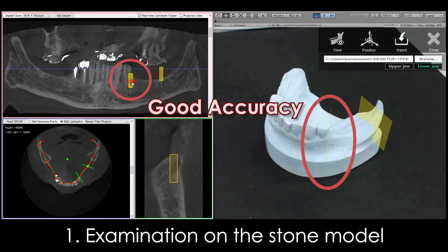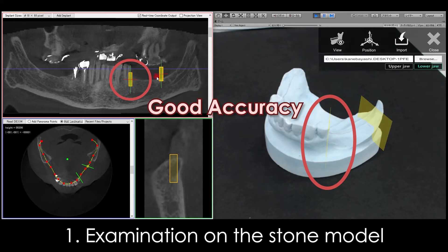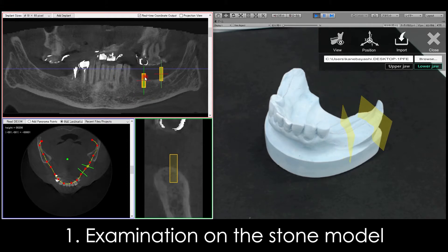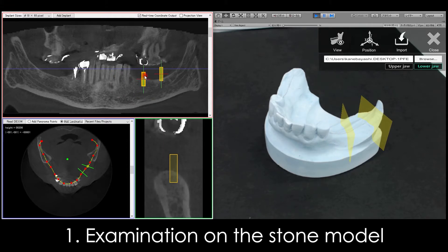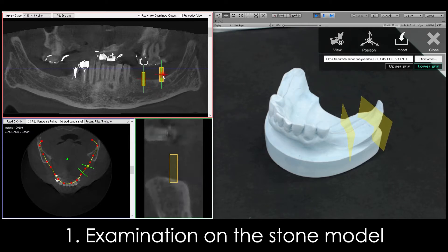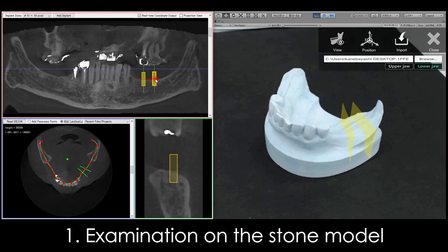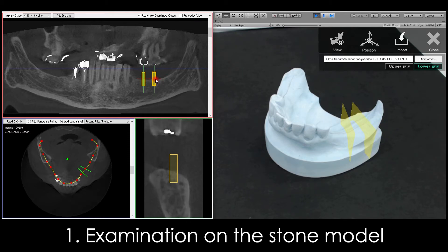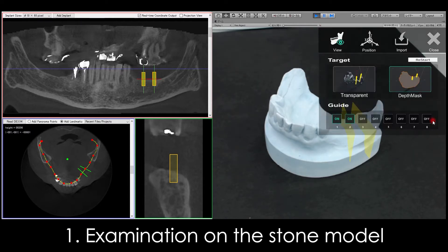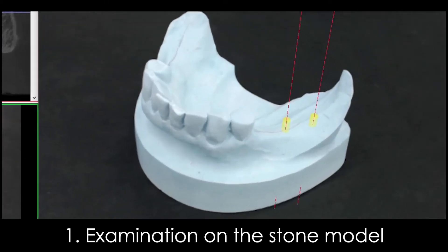As you can see, the display positions of the 3D objects are very accurate. The placement positions of the 2 implants were displayed on the stone model.